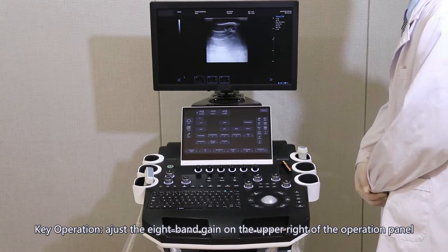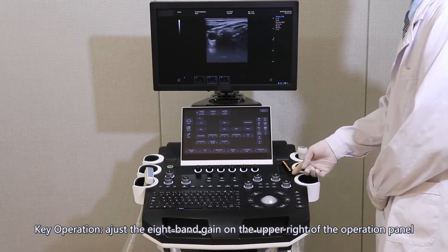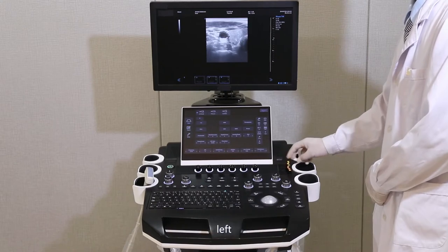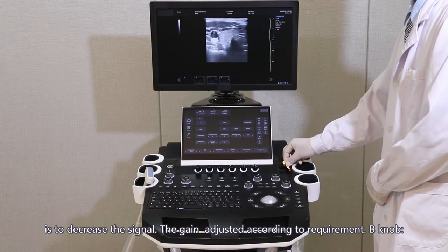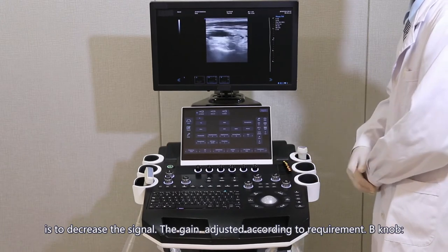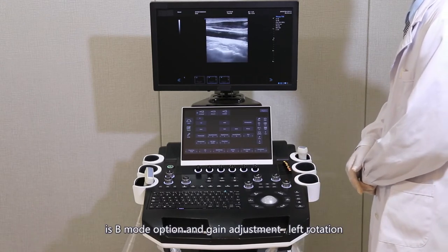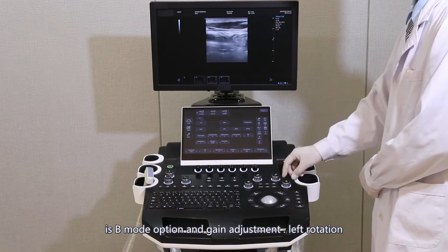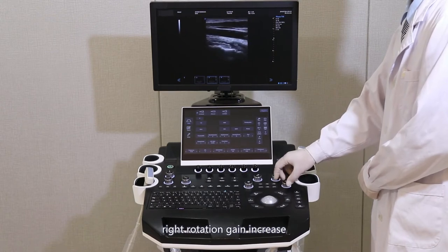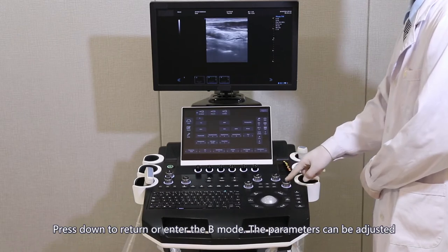Key operation: adjust the eight-band gain on the upper right of the operation panel. Right is to increase the signal; left is to decrease the signal. The gain is adjusted according to requirement. B-knob is a B-mode option and gain adjustment. Left rotation decreases gain; right rotation increases gain.